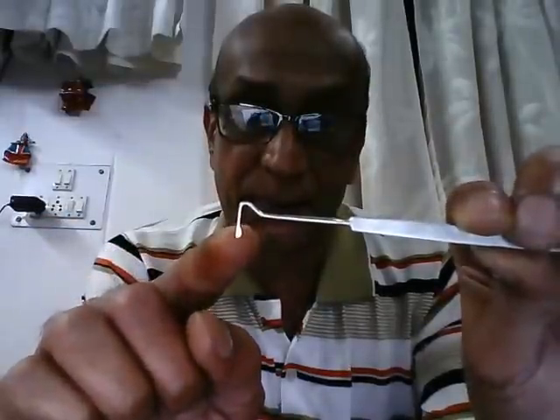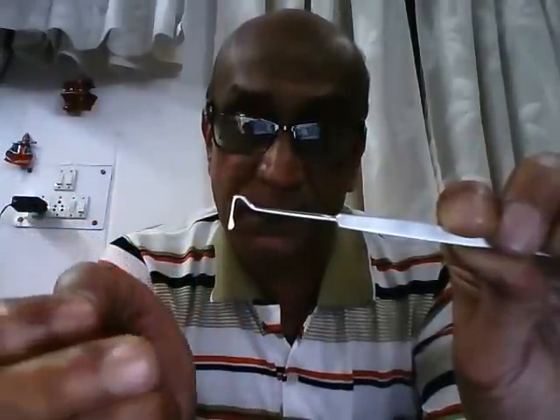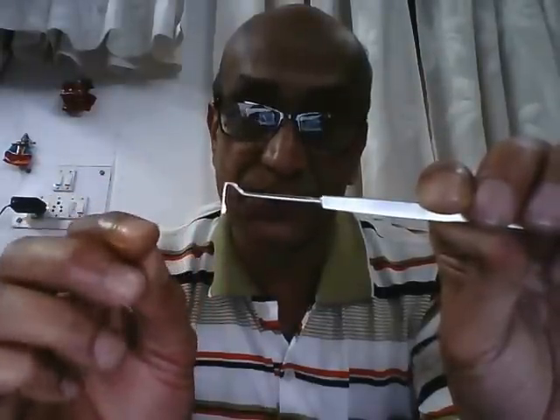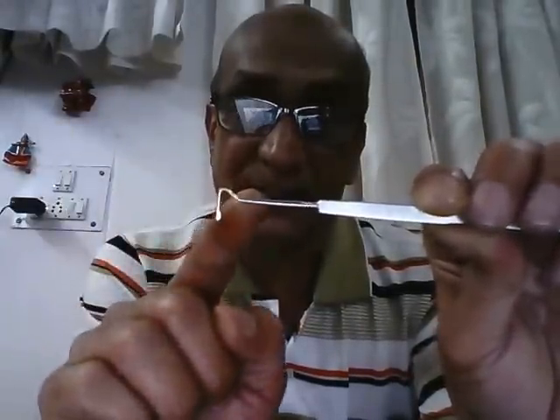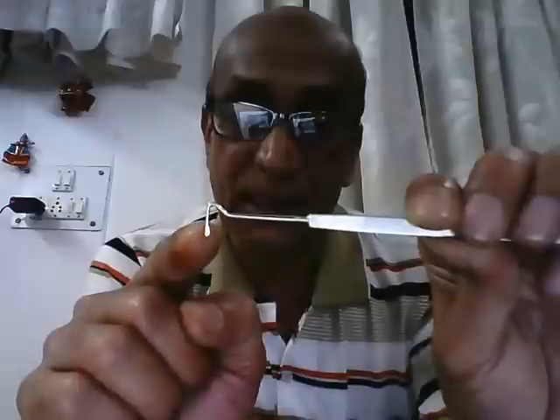The flattened tip is designed to be inserted under the insertion of the muscle onto the globe to hook it up. There can be theoretical confusion between this strabismus hook and the lens expressor, which is used to express the cataractous lens during cataract surgery. The difference is that the lens expressor has a right-angle angulation and a rounded rather than flattened tip. This is the strabismus hook or squint hook used in strabismus surgery.